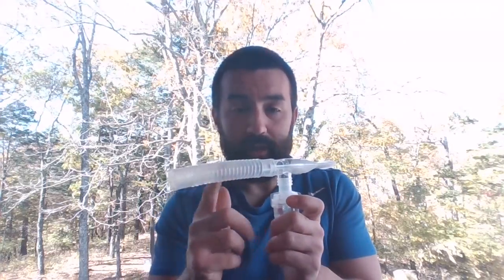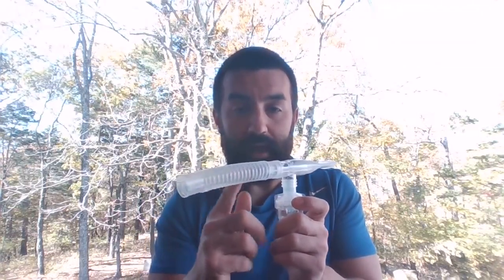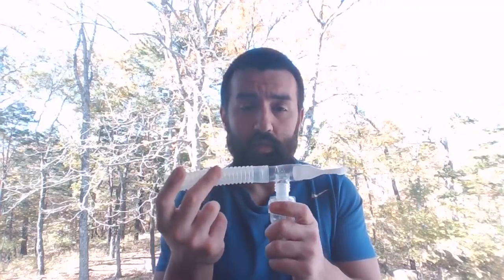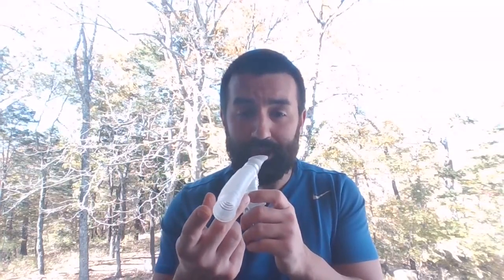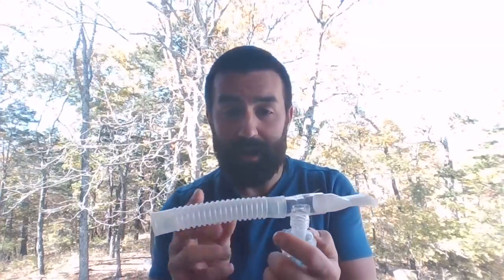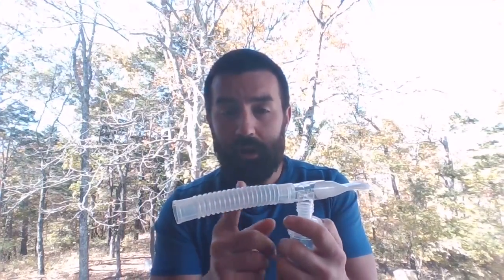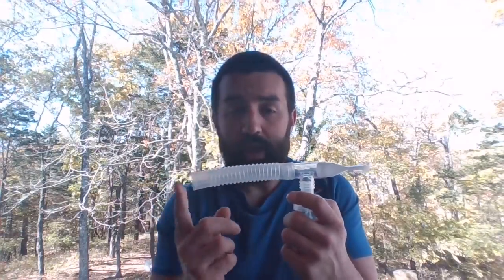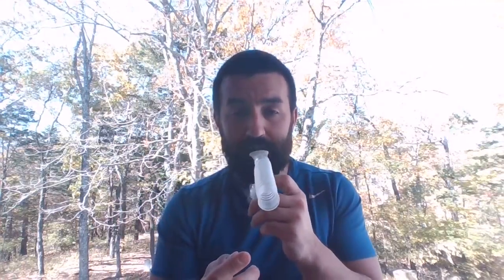Okay, so this is going to house all that extra medication coming out in between breaths, and it serves as a reservoir. So when my patient draws a breath in, they're going to get everything that's coming out of the device. They're going to draw in whatever aerosol is suspended in this particular reservoir. This also serves as a point for exhalation. So the patient would seal their lips on this, just nice normal breaths, doesn't have to be breathing all crazy or anything.